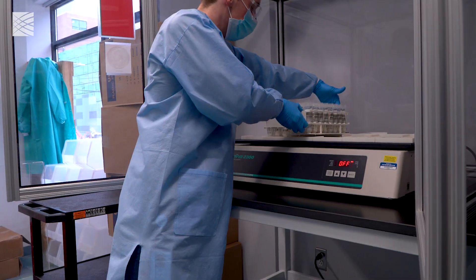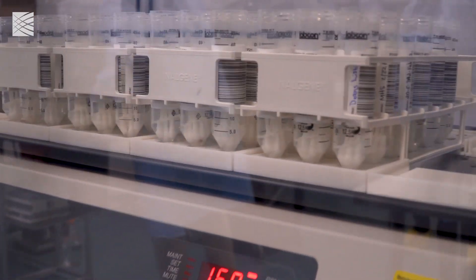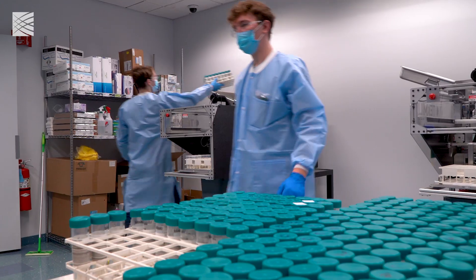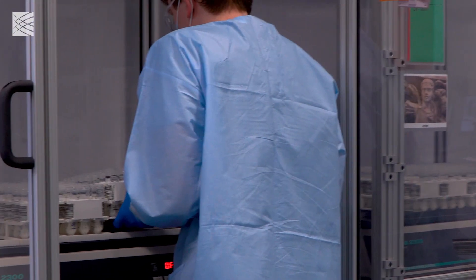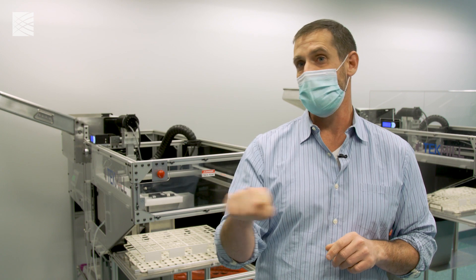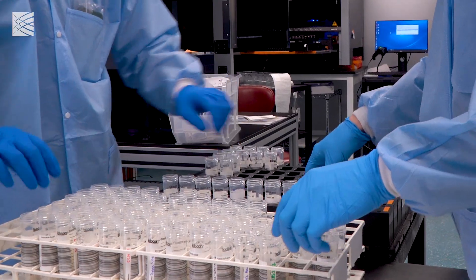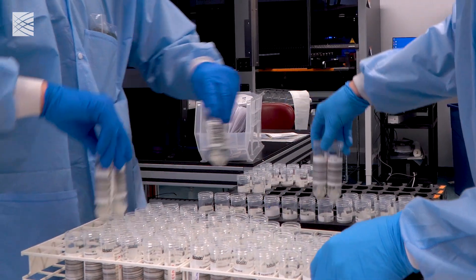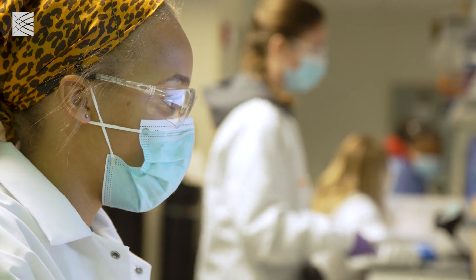This only works when the rate of infection is really, really low. If you're at 1% positivity in a population and sampling 100 students, that's 10 tubes — if one is positive, you tease that apart and find the positive. But at a 5% positive rate, probably four or five of those tubes are going to be positive, and you have to tease those apart. Eventually you get to a point where you have to tease apart so many pools that it negates the effort to begin with.